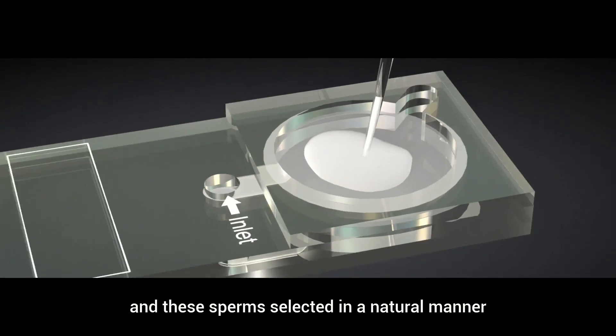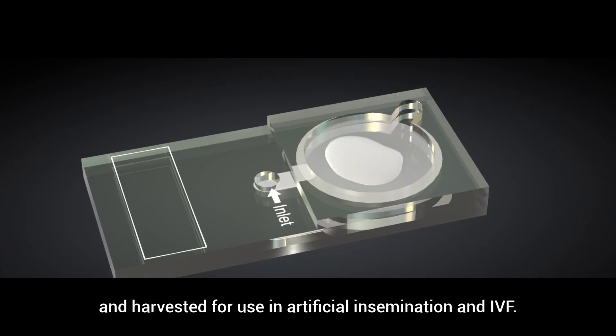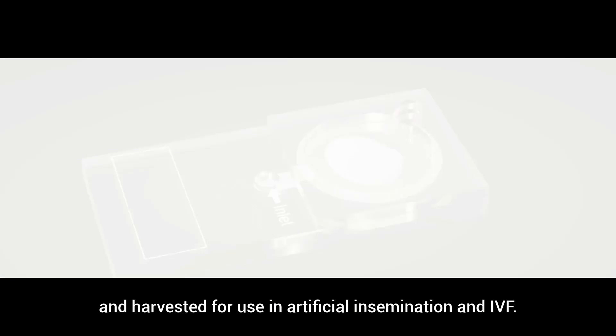And it's these sperm selected in a natural manner that represent the healthiest specimens and are harvested for use in artificial insemination and IVF.